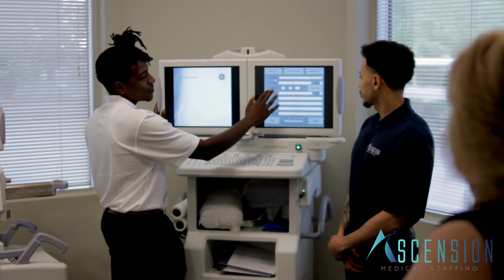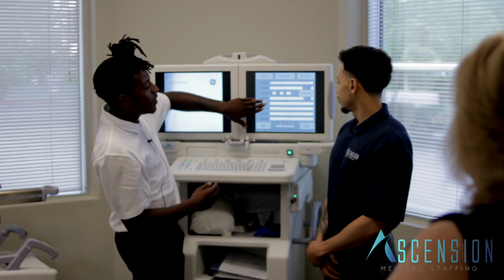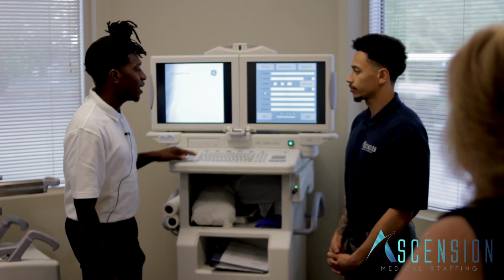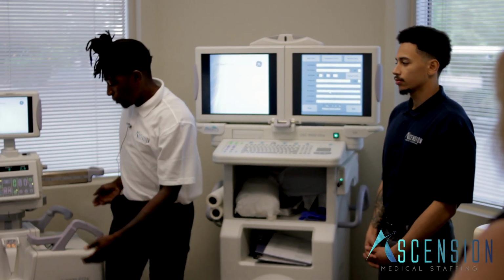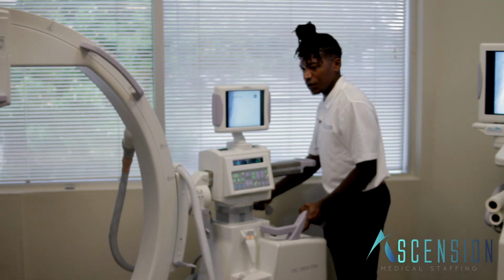We would add last name, first name, date of birth. If the patient does have an ID number, we would fill that in. Of course, you'd want to know which physician is doing the procedure, and then any comments, and the procedure's name as well. And then we would swing in here.